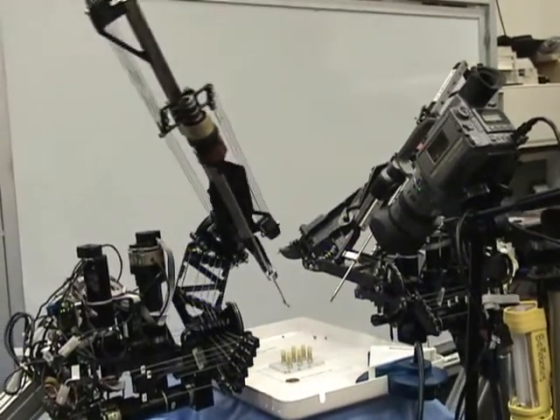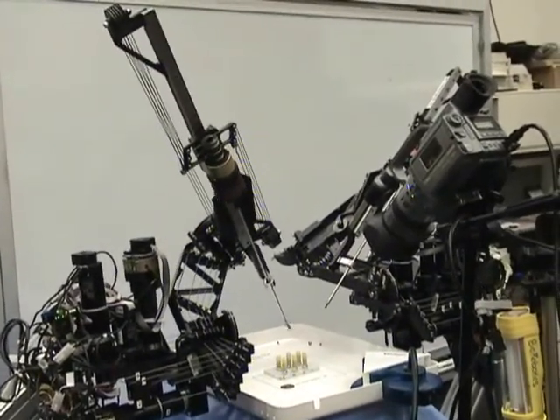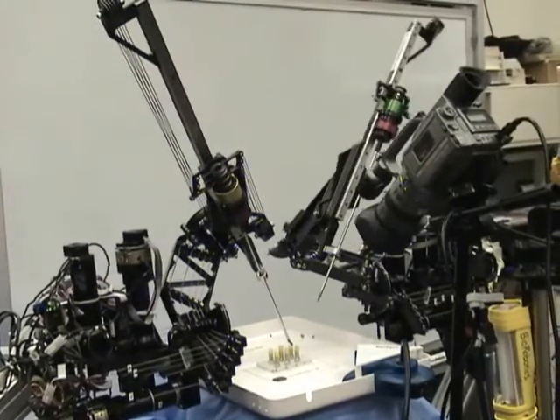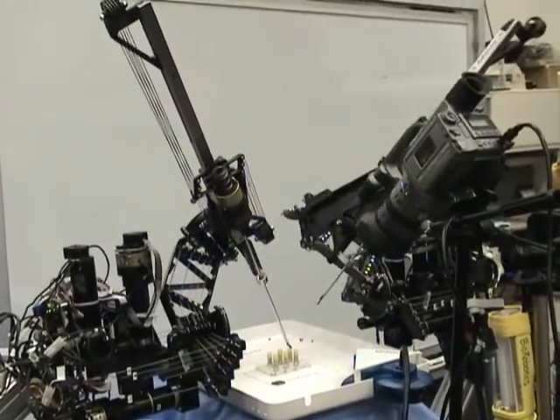The RAVEN surgical robot is a highly complex system. The following video will guide you through the skills required for telemanipulation tasks.